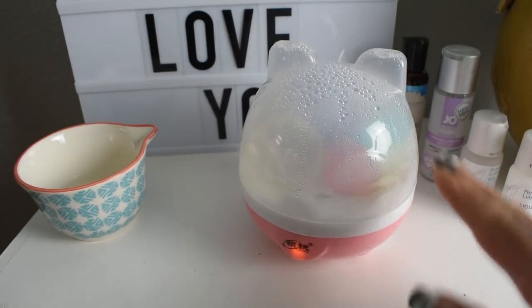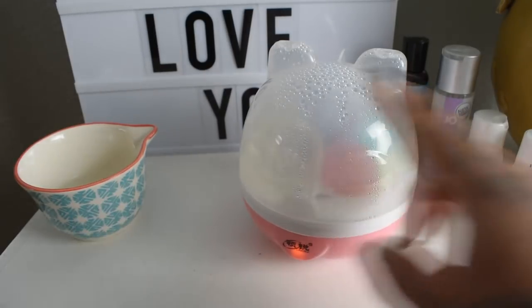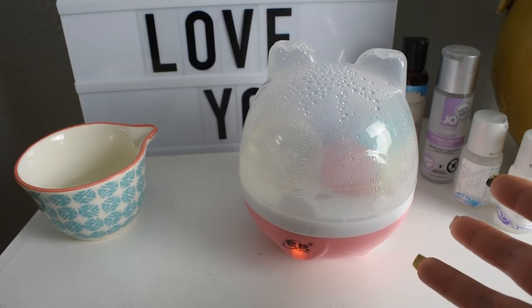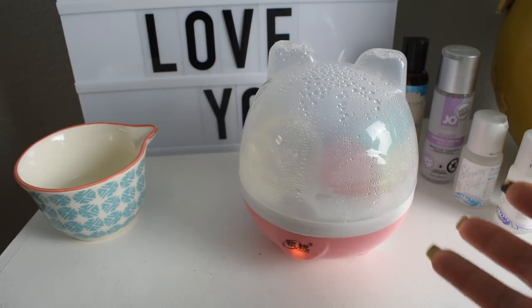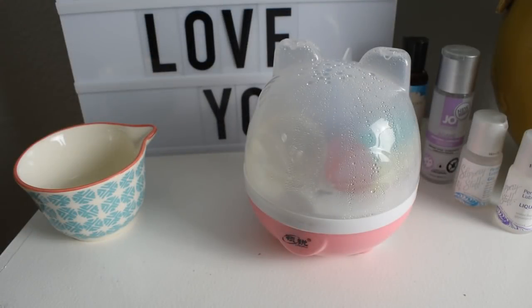Before I unplug it I'm going to take a temperature reading from the outside of the unit — remember that the boiling point is at the bottom, and by the time the steam circulates up here it's already cooled down some. Paired with the temperature outside of the dome, this reading is going to be significantly lower on the outside than on the inside. It reads 116 degrees. Make sure to allow this to cool completely before handling it or even taking off the lid. We're looking for a number around 175 degrees to kill off any microbes — even if we account for the cooling of the steam and added 10 degrees more, we still didn't reach that number. If you rinse your cup with cold water first to avoid staining, then wash it with a mild soap and then use the steamer, it might still lower the germ count. As you can see in these photos there was quite a bit of stuff left over in the water, but I feel like those would have been washed off easily under the tap.